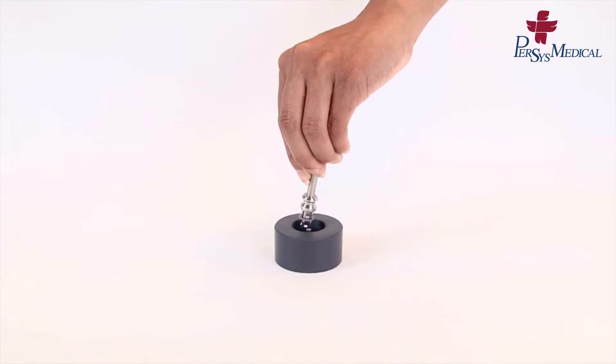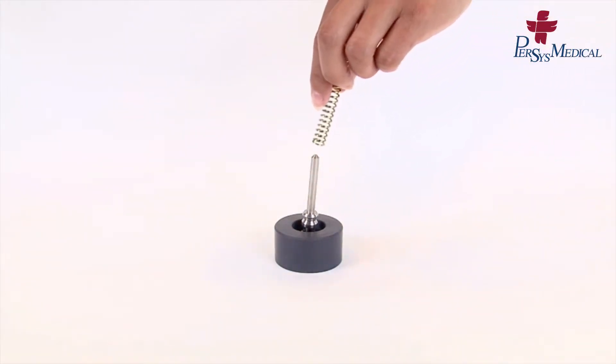Place the piston into the reloading base. Slide the spring onto the piston.